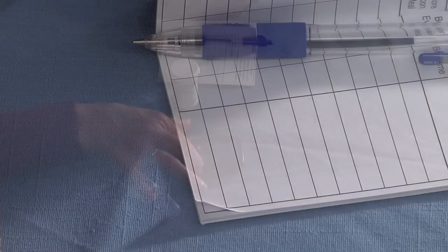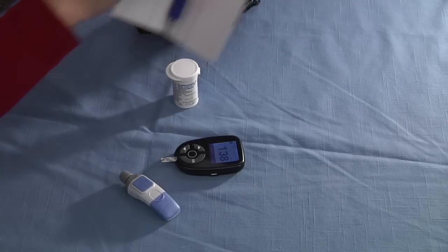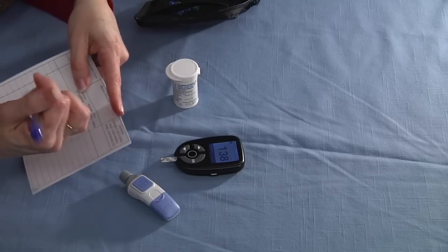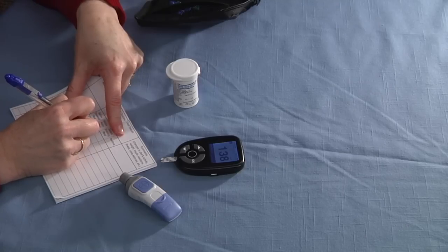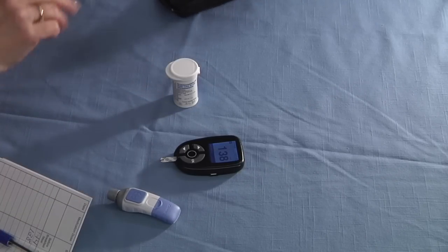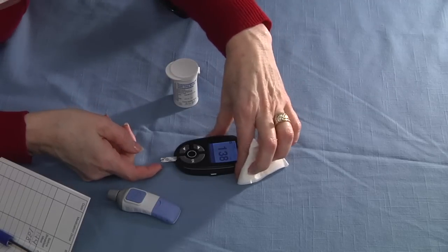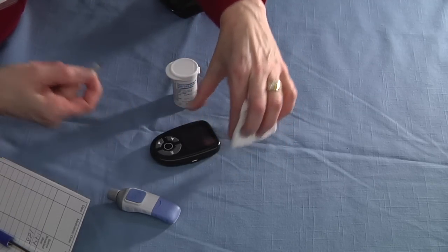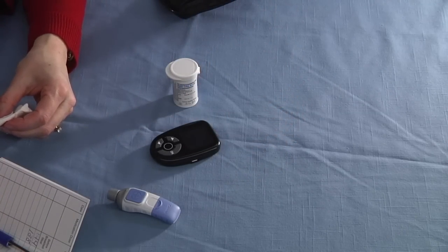And this is my blood sugar reading. Now you can get your record book out and I would want to put my result in my record book. After that, I'm going to take my strip out of my meter and you can simply throw this away.